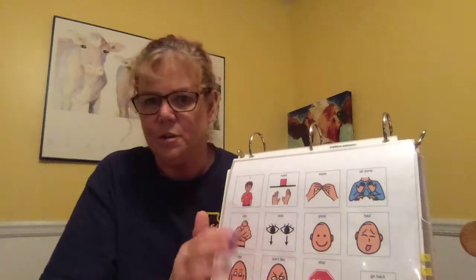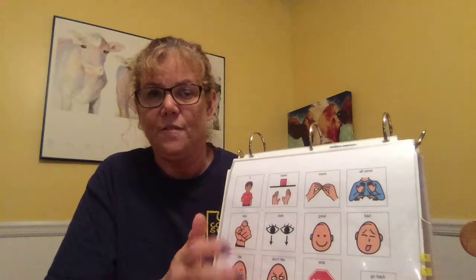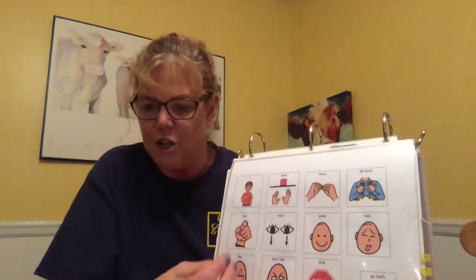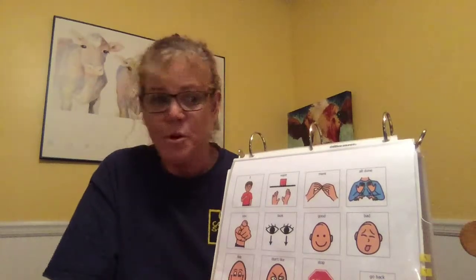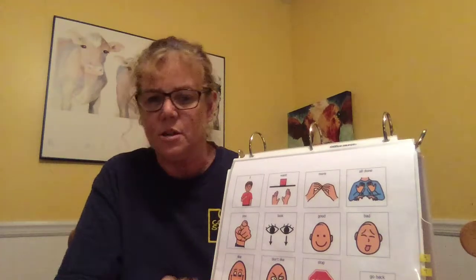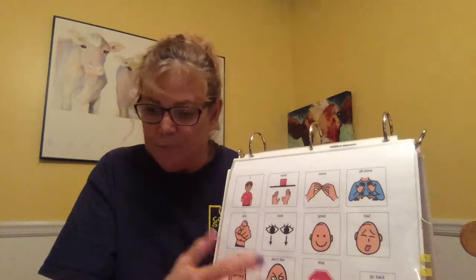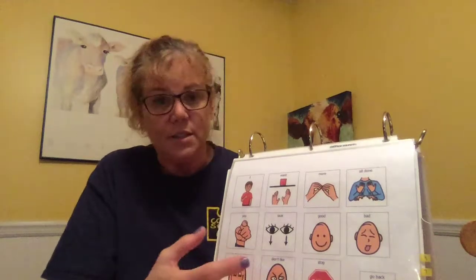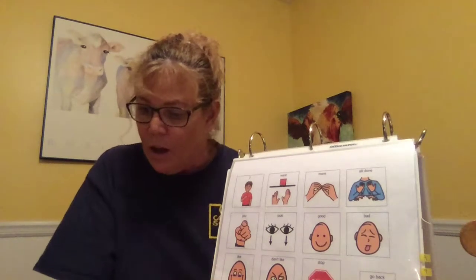But it can be added to, it can be changed, and I just really like the fact that it can be John's book for all his needs. School staff and parents can communicate about what pages need to go in here. I mean, staff can add pages to communicate with parents and vice versa. They can determine the order and the design of the pages that they feel is best for John.